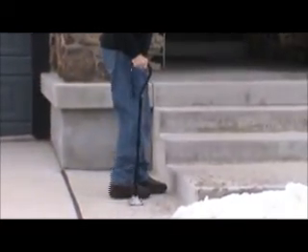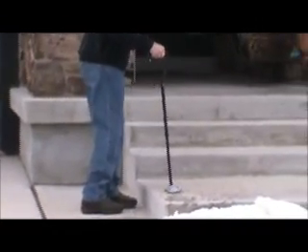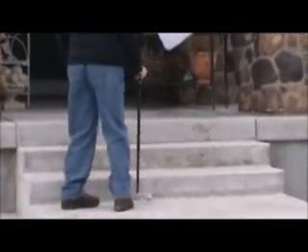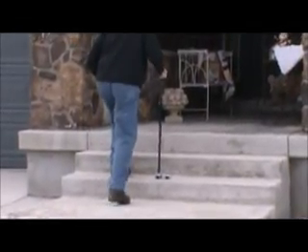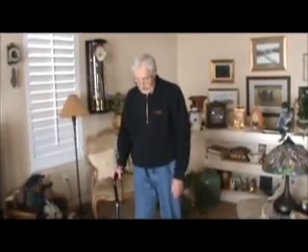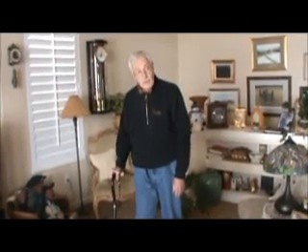My clients don't have to try and figure out how to use it or how to adjust to the different surface contacts — it's ready to go. This is the device I would choose over all the other single-point cane and single-extremity adaptive equipment. The genius and the excitement of this is that it's more in keeping with movement and with walking.